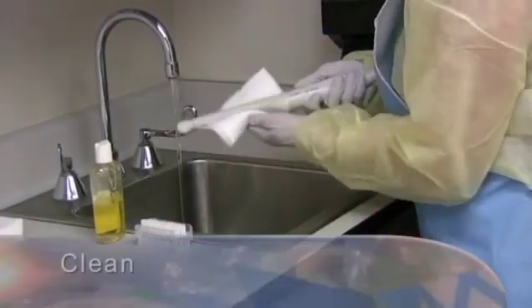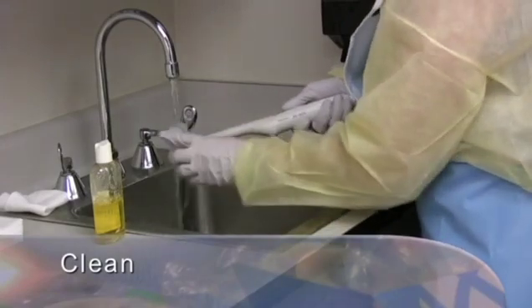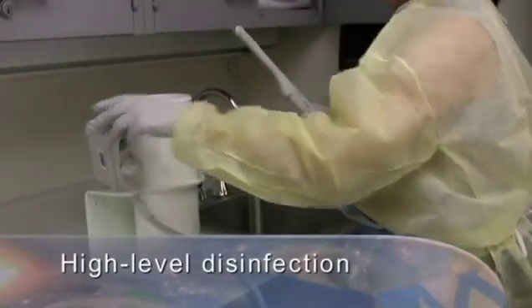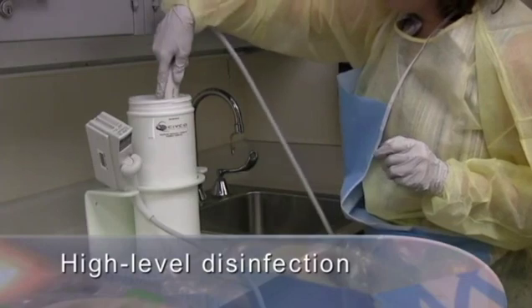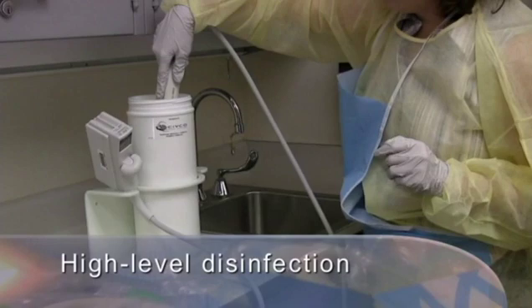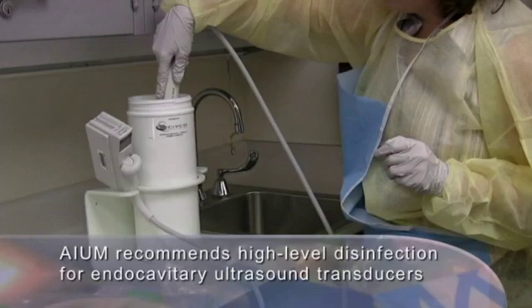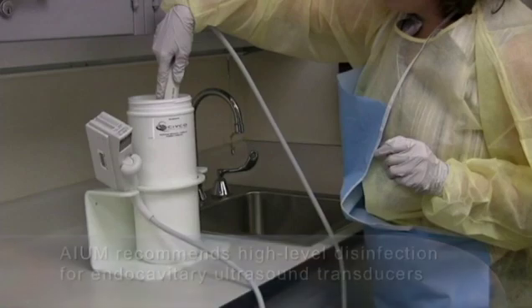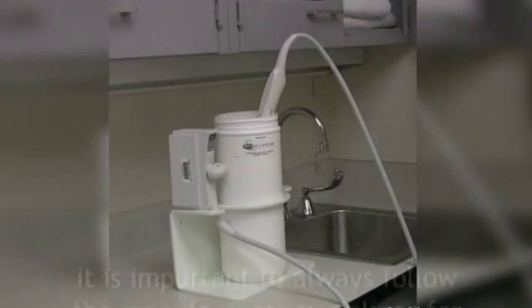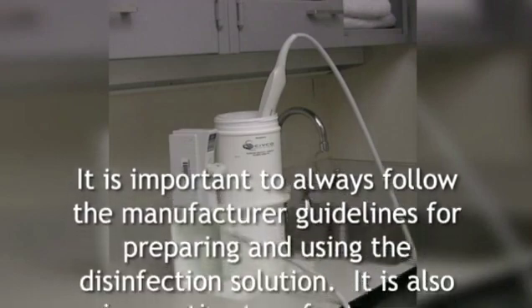To clean something is the physical removal of debris. We clean the transducer by thoroughly washing it with soap and water, and any spray or wipes recommended by your transducer manufacturer. High-level disinfection, by comparison, is the destruction of most microbes, including bacteria, viruses, and fungi. Even with high-level disinfection, bacterial spores may not be killed. The AIUM recommends use of high-level disinfection for endocavitary ultrasound transducers. The transducer should soak for the requisite amount of time for disinfection to occur. It is important to always follow the manufacturer guidelines for preparing and using the disinfection solution.